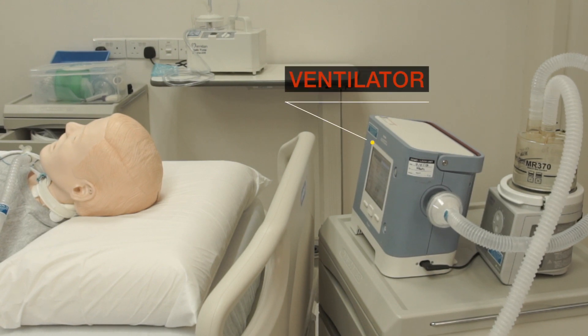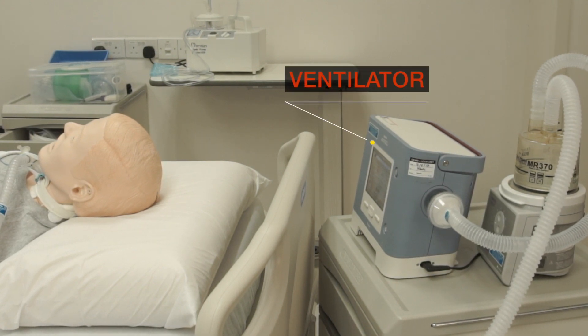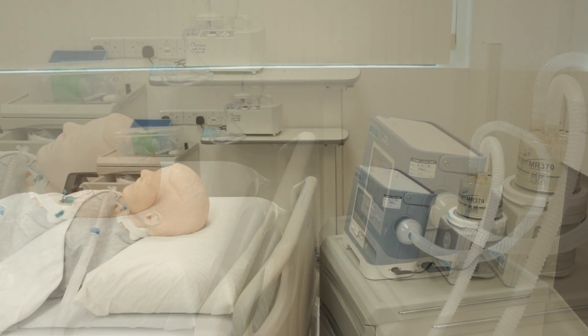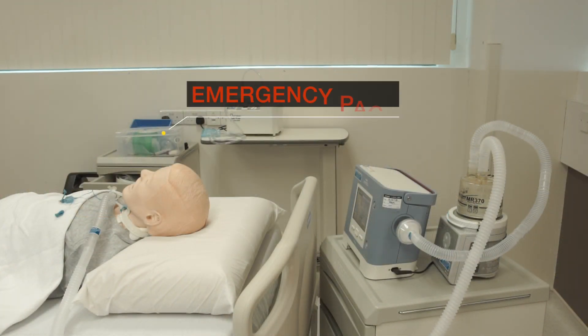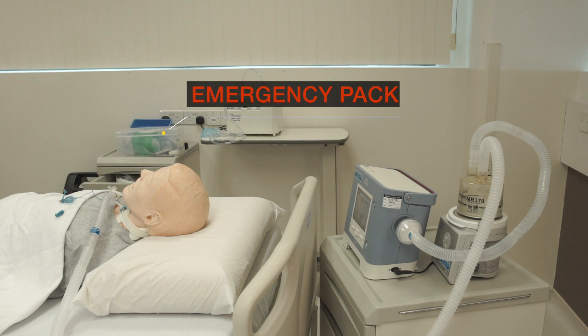Ventilator failure can cause a medical emergency if the patient is dependent on the ventilator. Always keep your emergency pack near the patient.